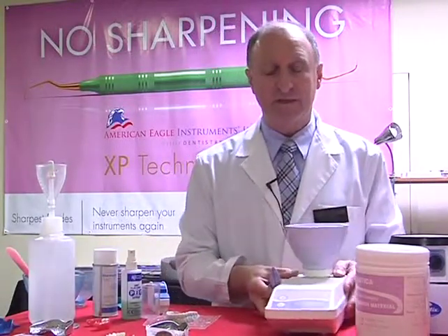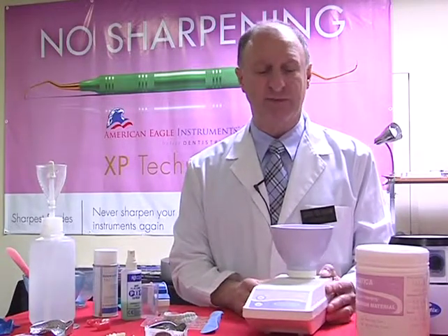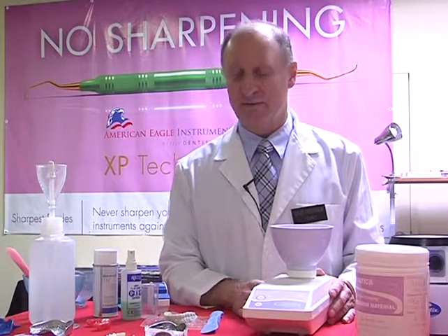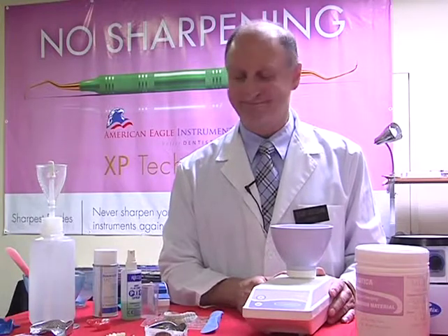Now this is especially good if we're doing a lot of mixes in a busy office where we're taking a lot of impressions, whether it be for a case of impression trays, obviously for where we're doing bleaching trays, mouth guards, or it could be many other things.